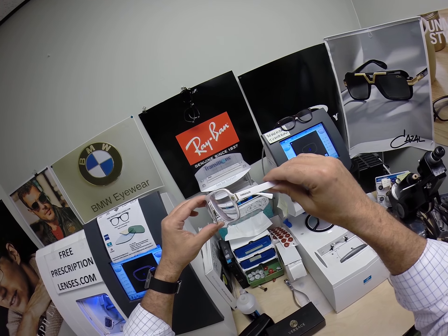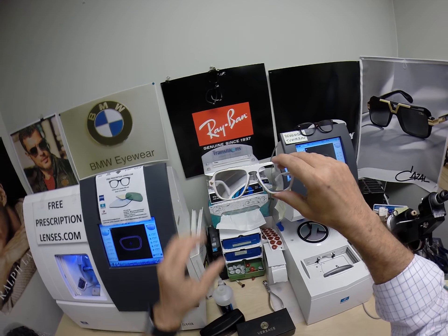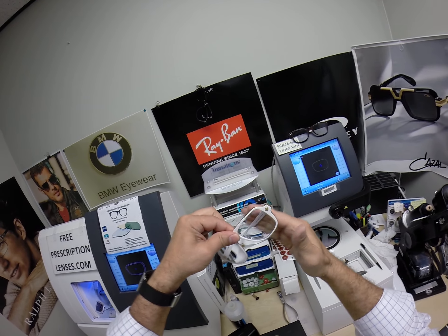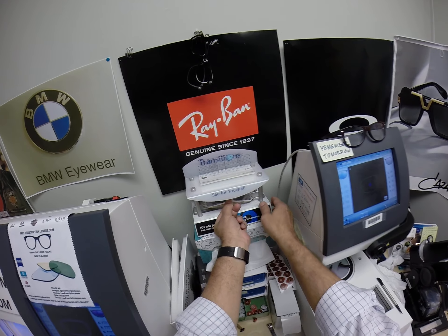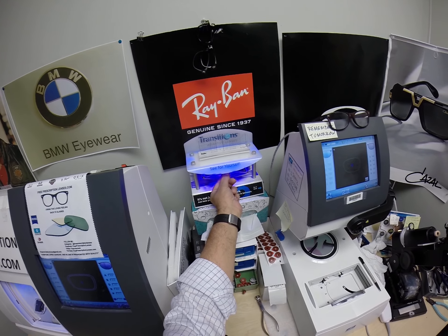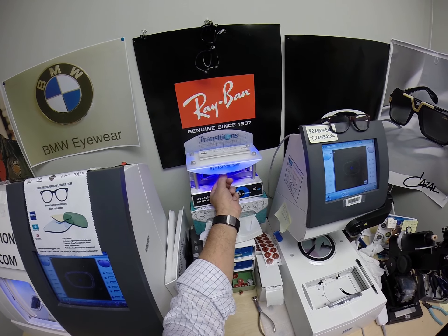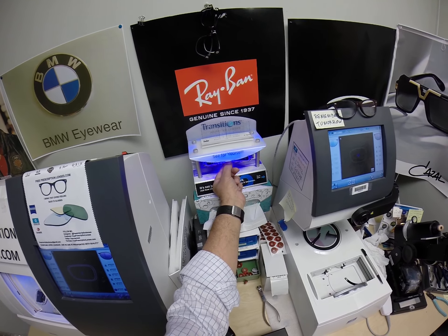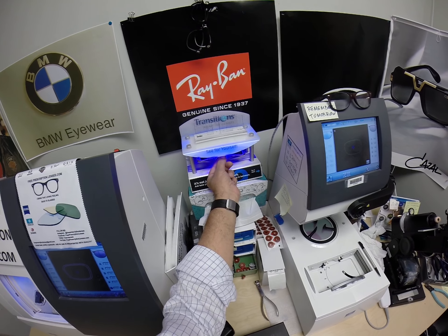Now everyone pay attention. All photochromic transition lenses will get dark on day one and continue to darken every day for the first couple of weeks when exposed to the sun. After that, they work for years at maximum performance. The only time they won't work is if you're behind the windshield of a car. Your windshield absorbs the sun's harmful ultraviolet rays — that's what would cause your dashboard to crack from sitting in the sun all day — and that's why they don't turn dark in a car.